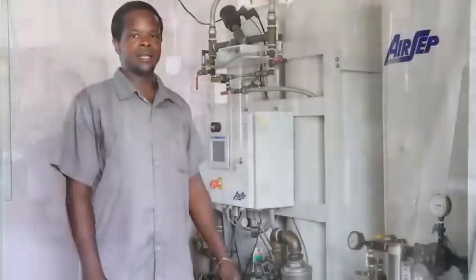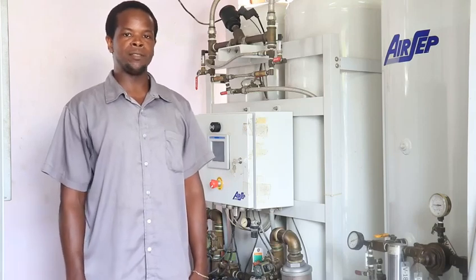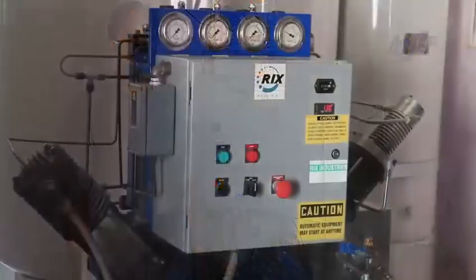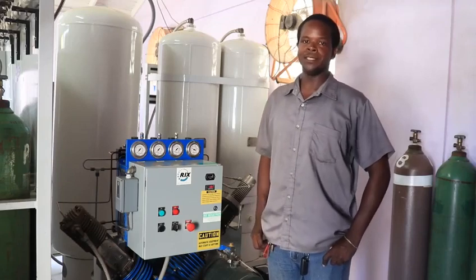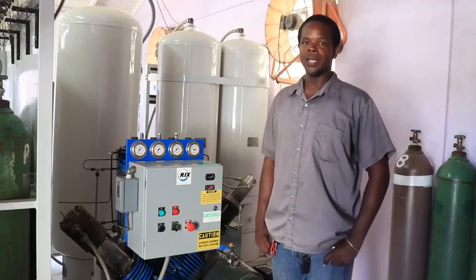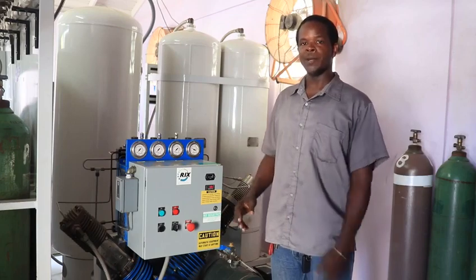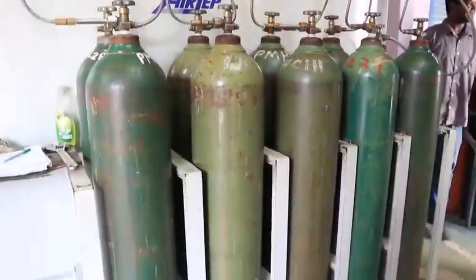The receiver tank has a sensor which is used to check the purity level of the oxygen before allowing it to flow to the oxygen compressor. Lastly is the oxygen compressor. With the purity level at a sufficient percentage, the oxygen compressor takes in the oxygen-rich air and passes it through a series of three stages that pressurizes the oxygen at a set pressure and commences filling the oxygen cylinders at the front of the machine.